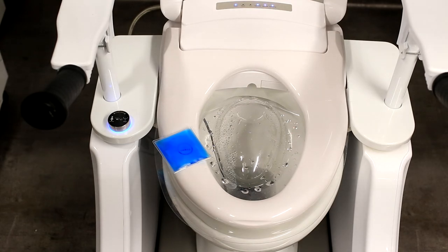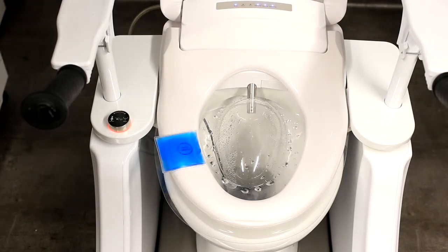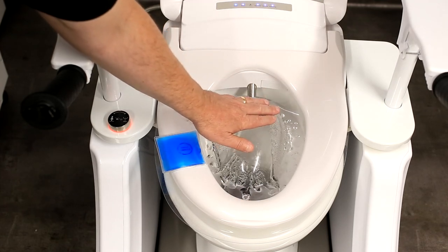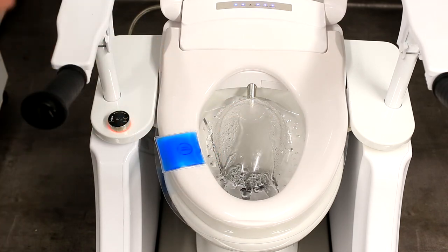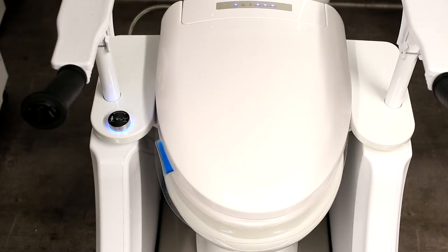It's just shutting down. When you're being washed by this new wash dry toilet raiser, the spray is lovely and warm — it's not cold. But you can actually adjust the temperature if you wish. One of the features worth mentioning is the toilet raiser fits over any standard community toilet in your home, even back-to-wall toilets or close-couple toilets. It will fit into any domestic home setting, and it's easy to fit by a competent plumber.